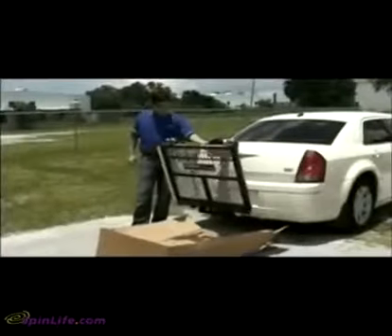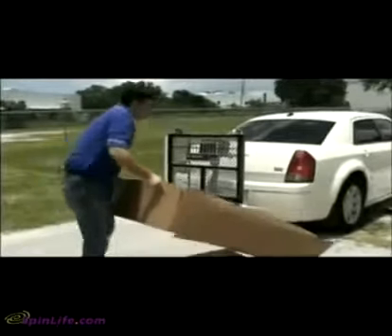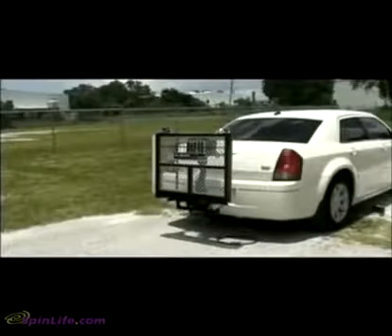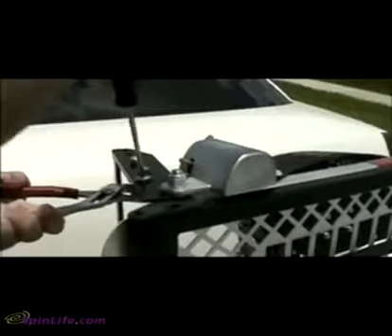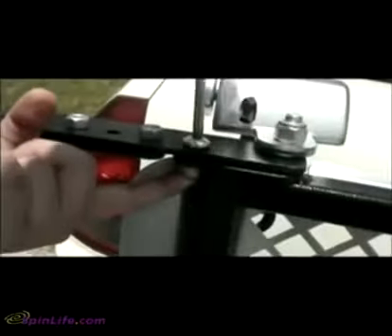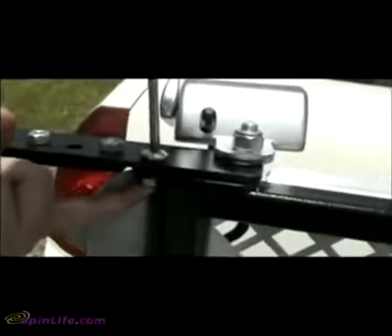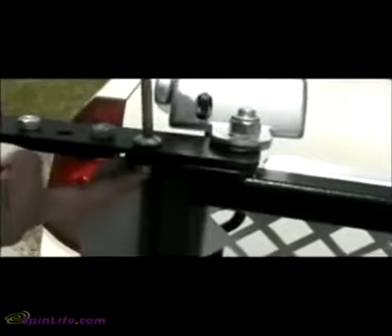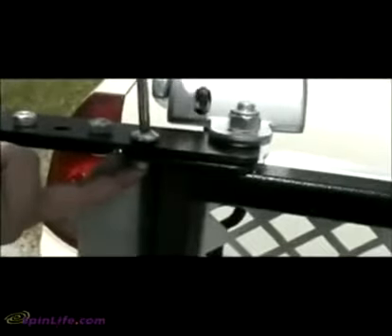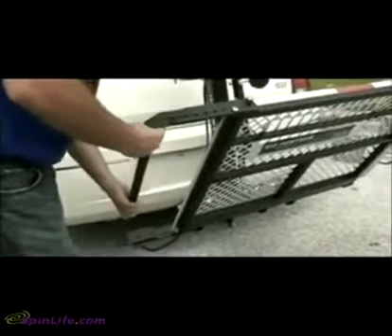Power the lift up to a fully folded position and remove the box. The AL300 is equipped with a wheel cradle where the scooter's back wheels will rest. This cradle must be loosened and lowered to the proper position. Remove the bolts on either end and lower the cradle bar. Once in place, reinsert and tighten the bolts, beginning by holding the nut beneath and tightening the bolt directly onto it. A wedge can be placed between the nut and the platform to finish tightening. The wheel cradle can also be adjusted to accommodate longer scooters.